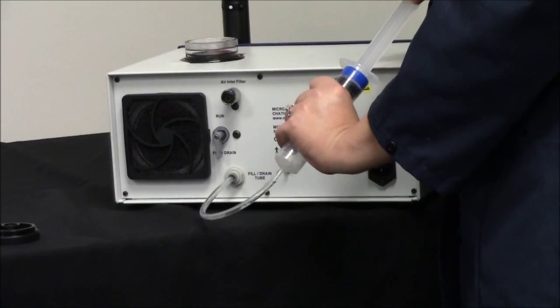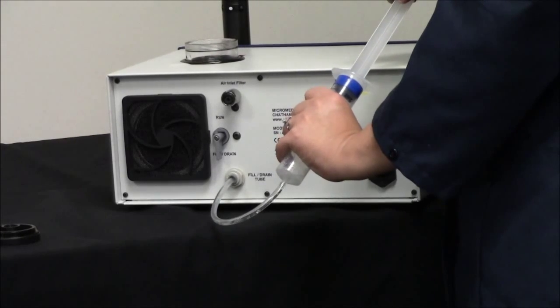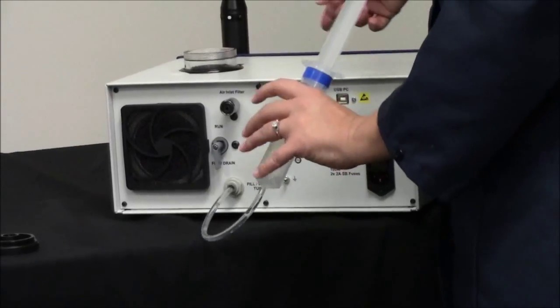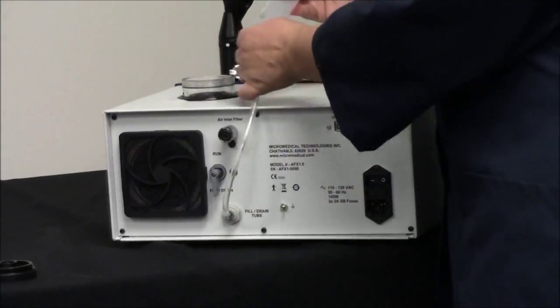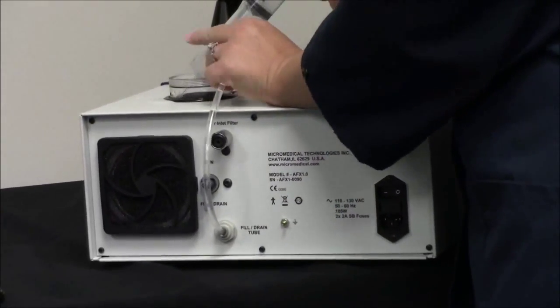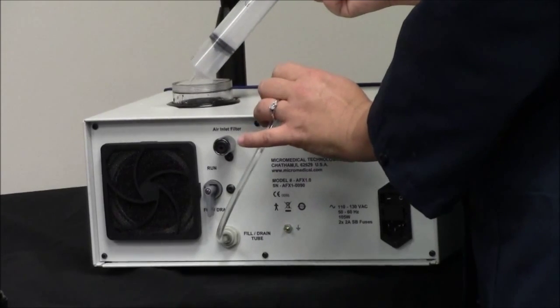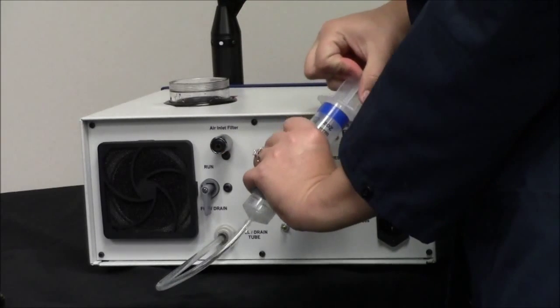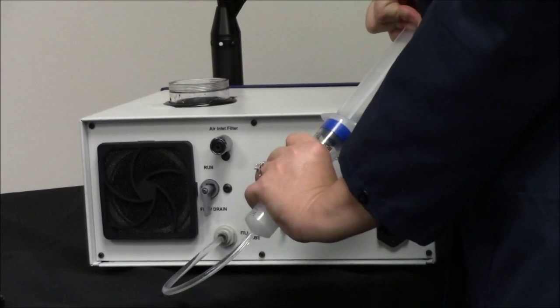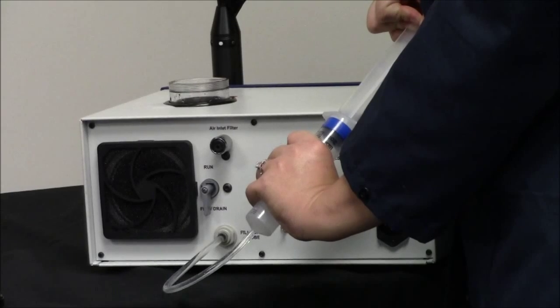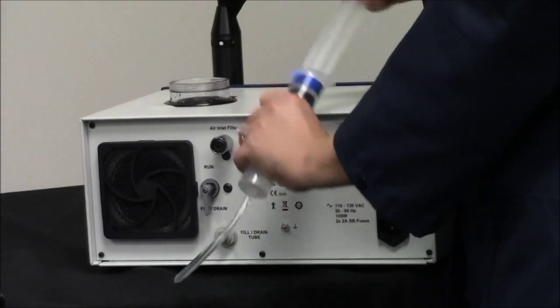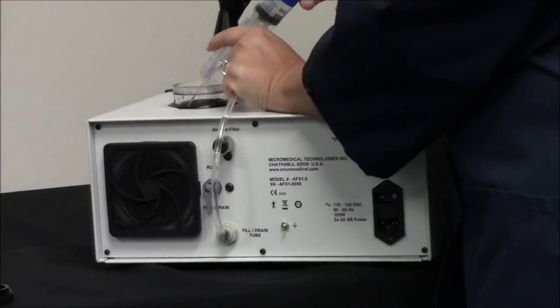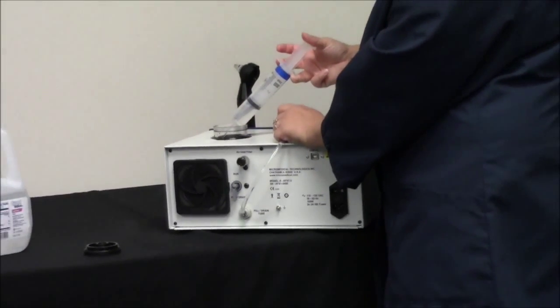You're going to suck all the air out. What that does is it moves the water all the way through the handle hose so that way there's no air bubbles and the water pump is free to pump the water through the lines. You should do this three or four times until there's no significant amount of air bubbles.